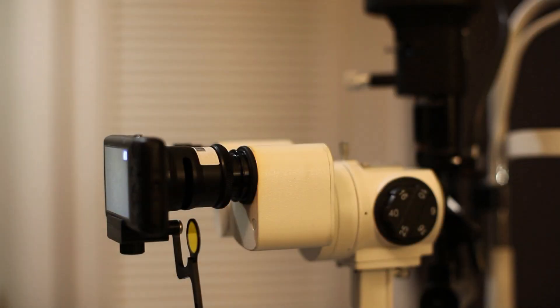Carolinophthalmics has taken an existing product, the slit lamp eyepiece camera, and made it user friendly.